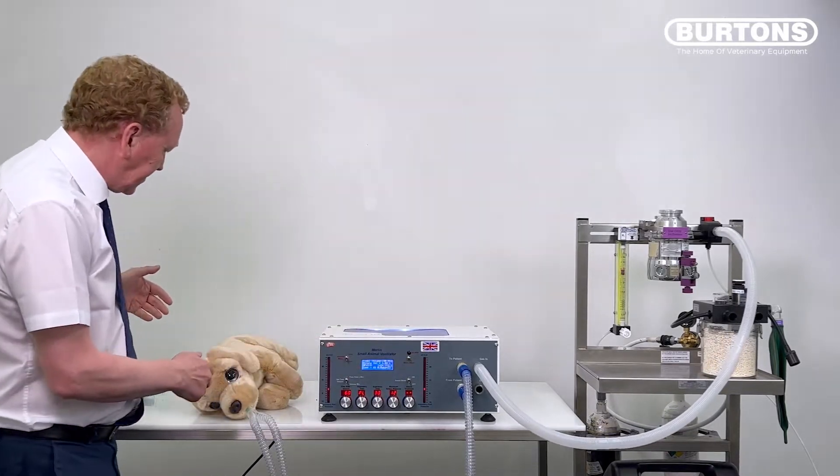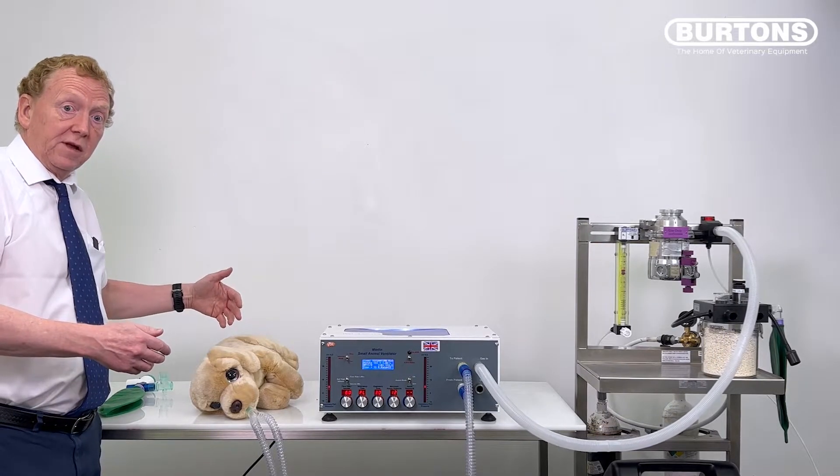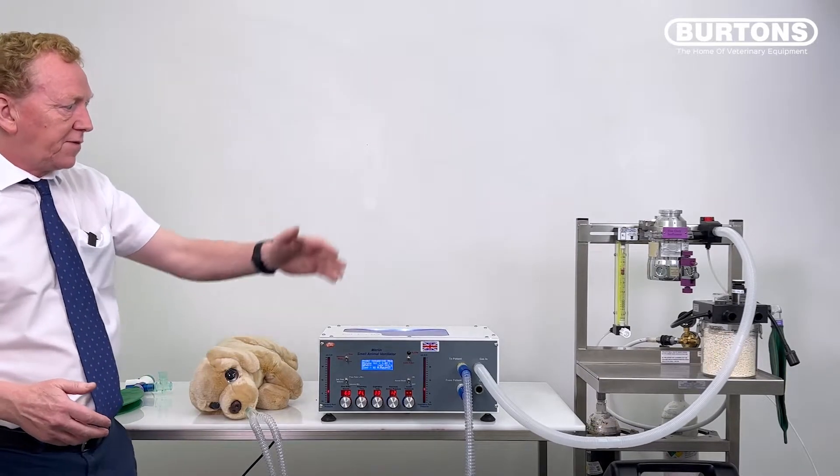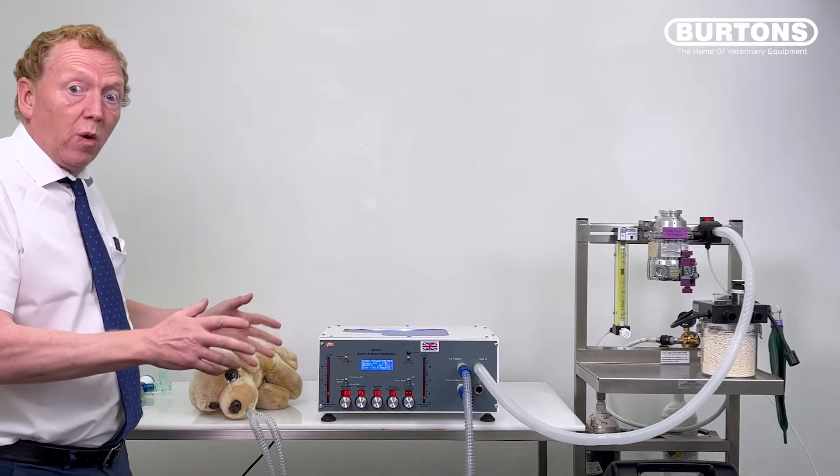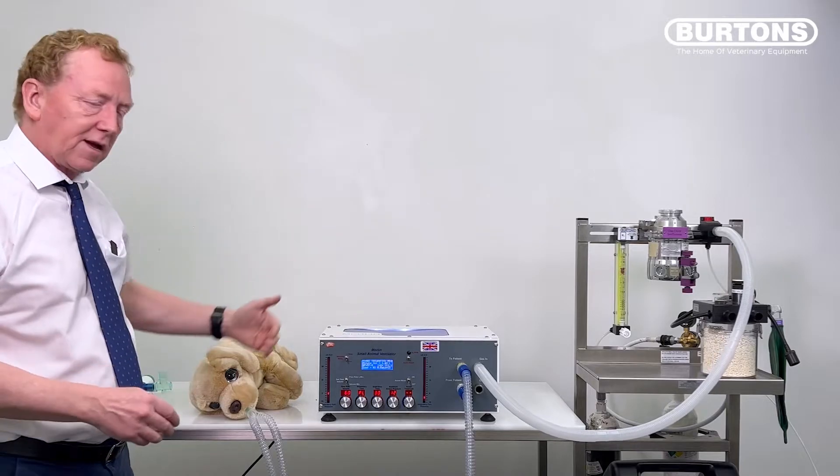If we take one step further back, we can see our patient is having a nice inspiration. And at the end of inspiration, is then getting a real burst of pressure. So this is a very good demonstration, a very graphic demonstration of why we can't just feed the fresh gas flow from the anaesthetic machine into the gas inlet of Merlin.